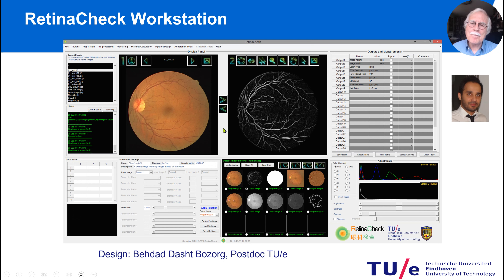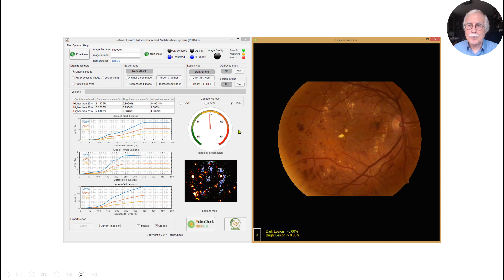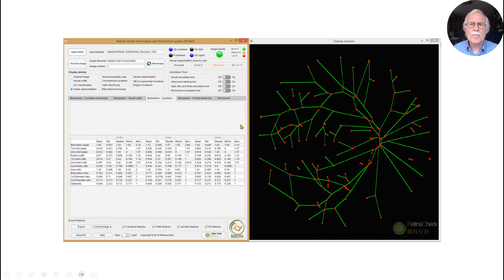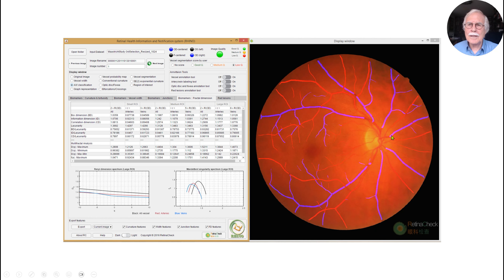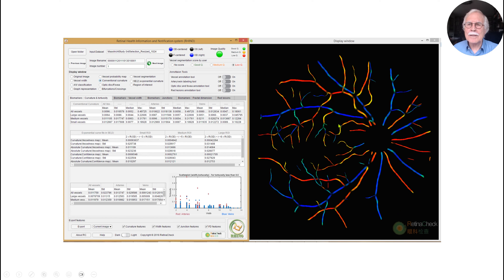We made the RetinaCheck workstation, done for doctors who measured all these properties from the images. They found it very versatile. When an image was done, the software could measure and display all the proper statistics — what happens with this particular retina, how many cotton wool spots, etc. The landmark detection, particular pieces of branches, we could nicely measure cotton wool spots shown in very gray areas. We had artery and vein detection, we could measure the curvature, all displayed quantitatively.